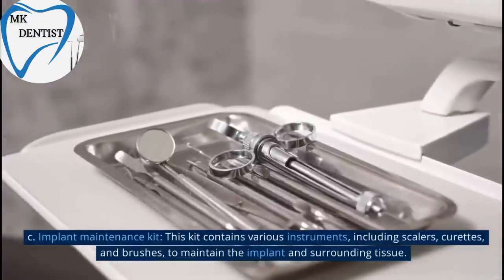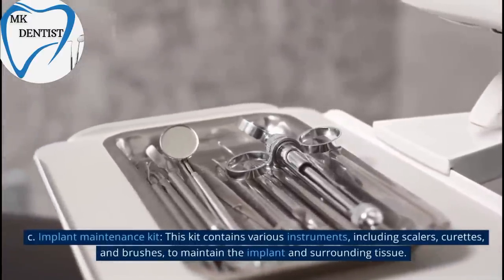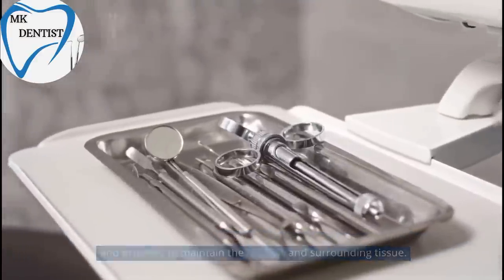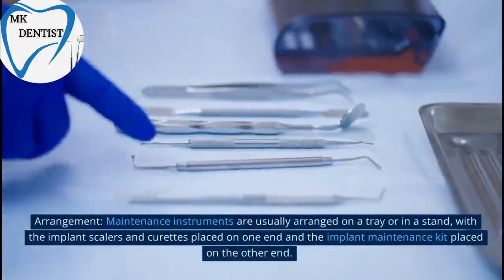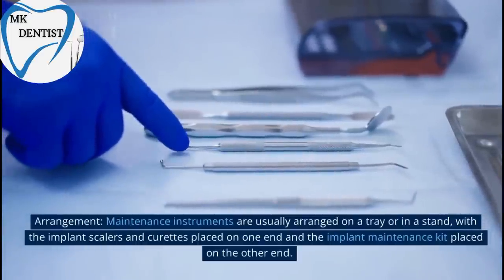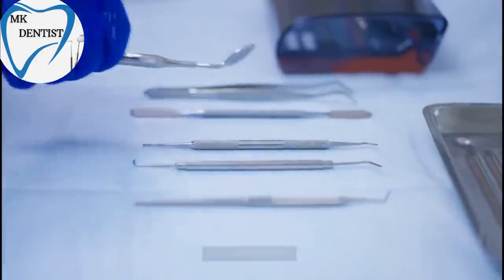C. Implant Maintenance Kit. This kit contains various instruments, including scalers, curets, and brushes, to maintain the implant and surrounding tissue. Arrangement. Maintenance Instruments are usually arranged on a tray or in a stand, with the implant scalers and curets placed on one end and the implant maintenance kit placed on the other end.